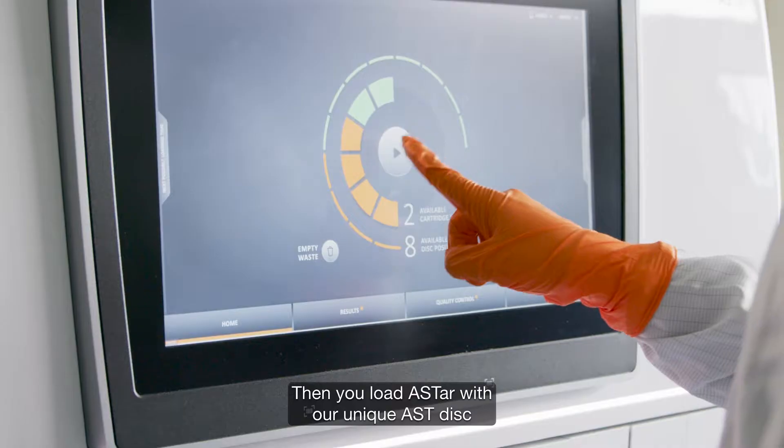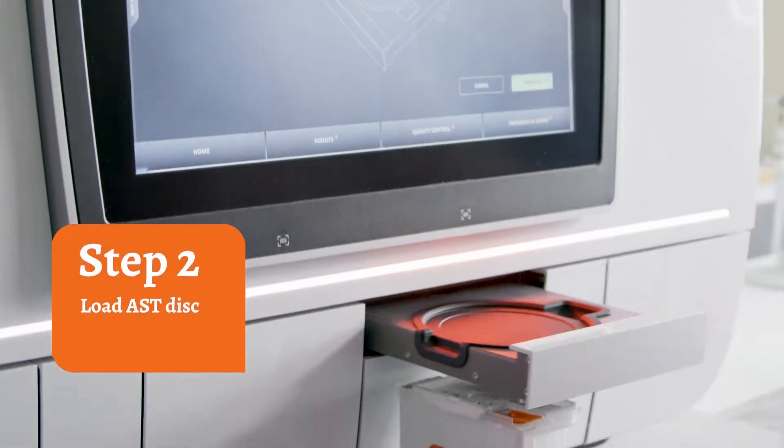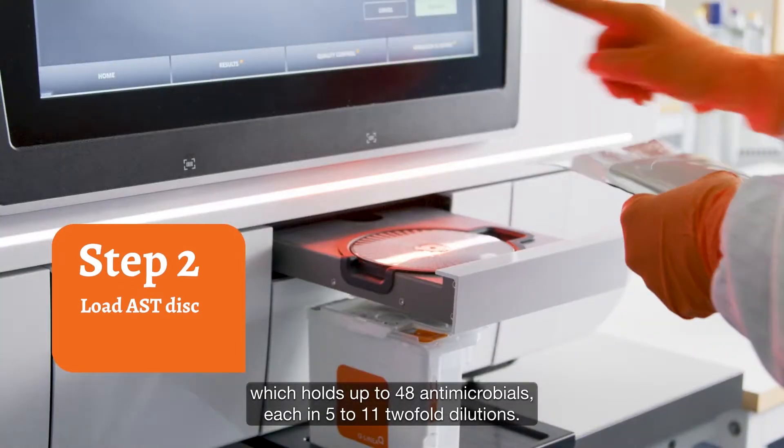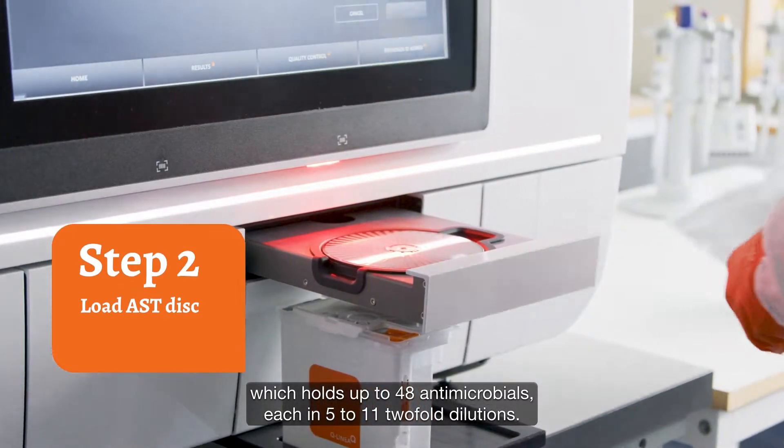Then you load ASTAR with our unique AST disc, which holds up to 48 antimicrobials, each in 5 to 11 two-fold dilutions.